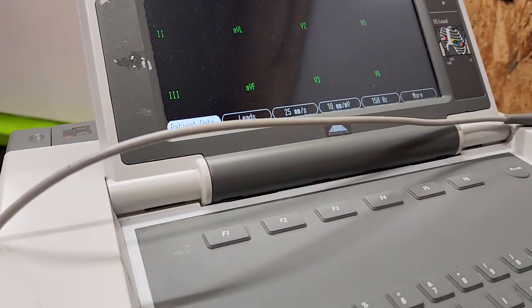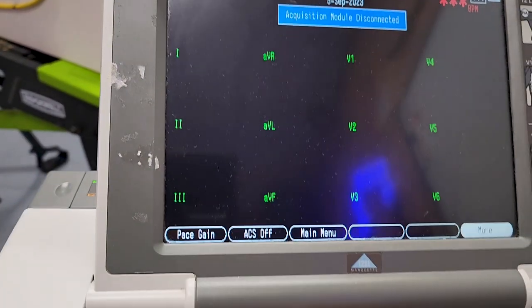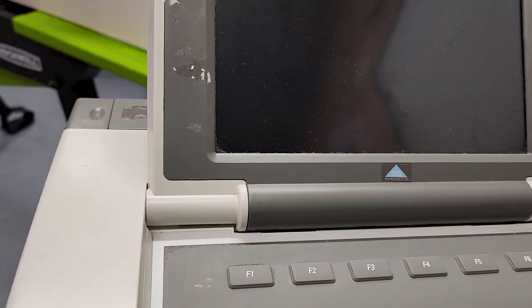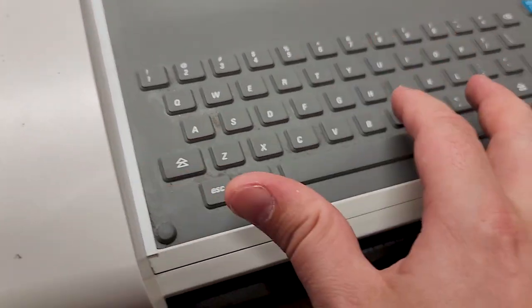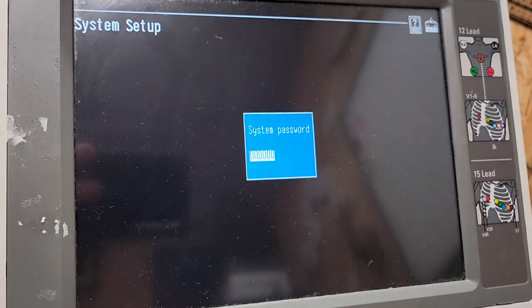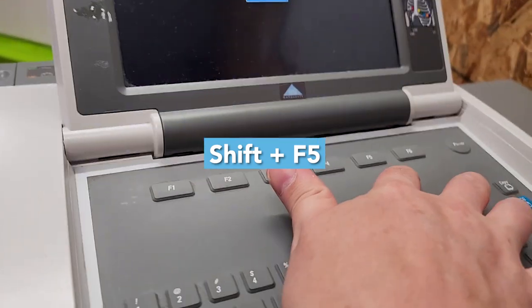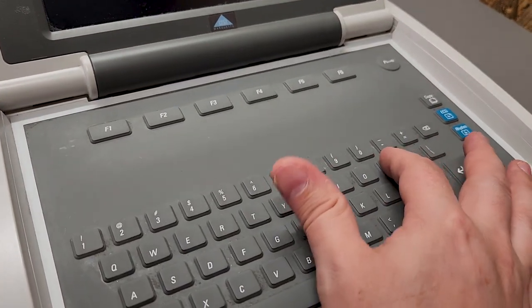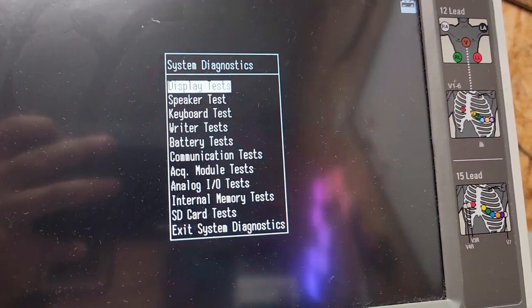I'm going to go into the diagnostics menu. We go to the main menu right here — go to 'More', then to this tab right here which is System Setup. Enter the password, then push Enter. That takes you to this menu. Then we press Shift and F5, which pulls up a whole other dialog box — it says 'Service Password'. Type in 'P-R-O-D' and press Enter. That takes us into the super secret system diagnostics menu, and this is where the key is really going to happen.